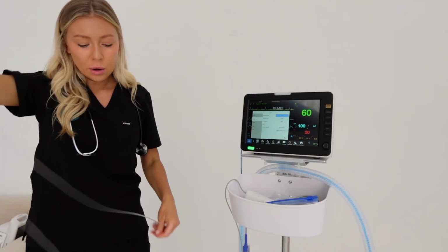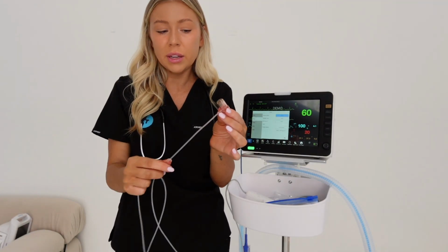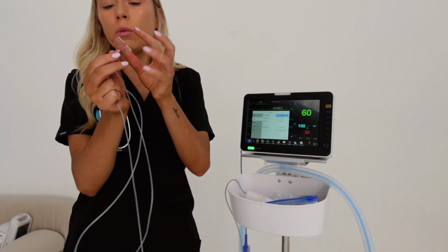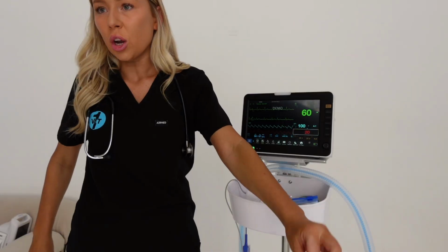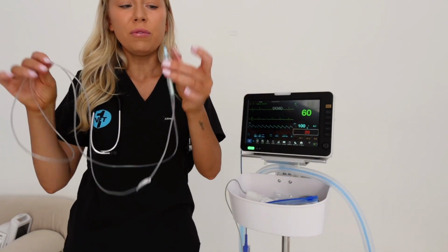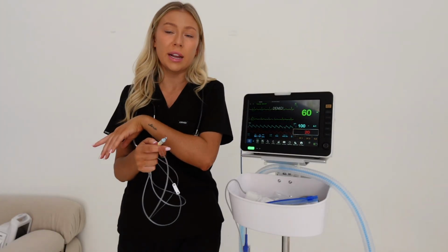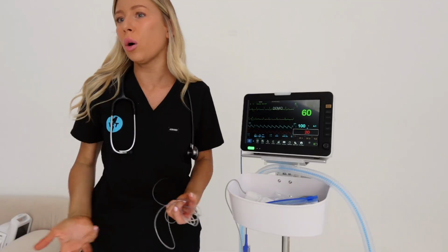Be really careful with the ends of these sample lines. They can be quite delicate where the plastic hits the line, and I've seen these tear, so be really delicate when you are using them, because you don't want to break one and then not have one for another patient. It is always a good idea to have a couple of backups of these. But if you do break it, please tell your practice manager, tell someone, because this might be a really important component of the next anaesthetic that you do for a patient that might be respiratory compromised.